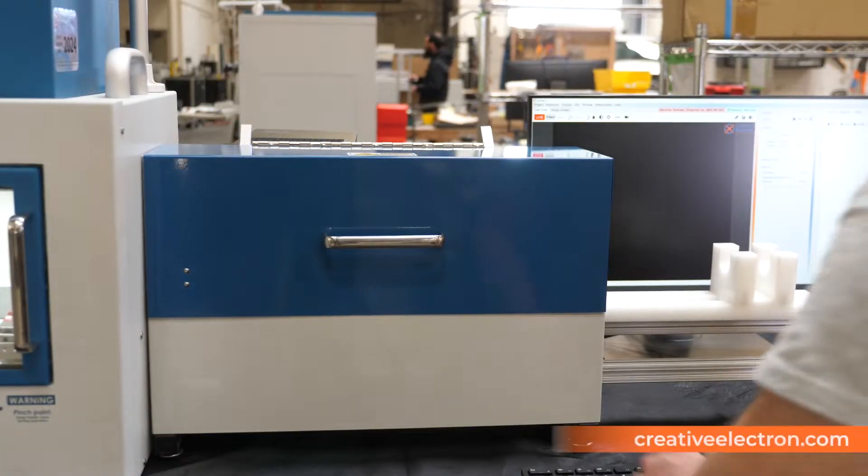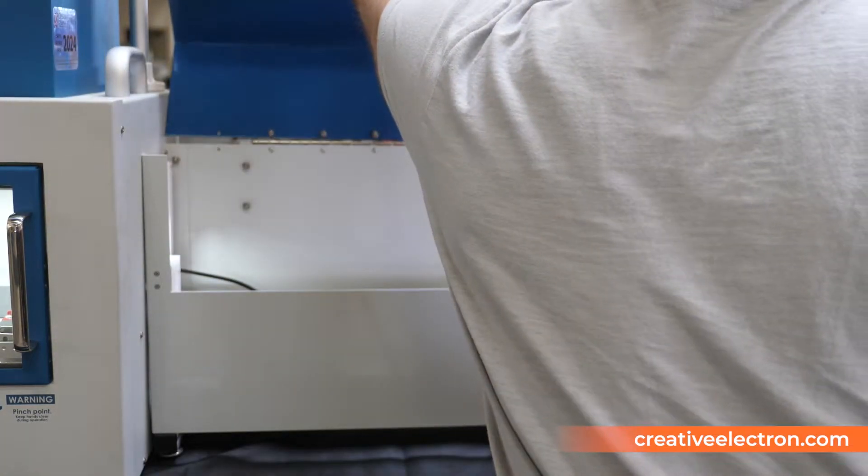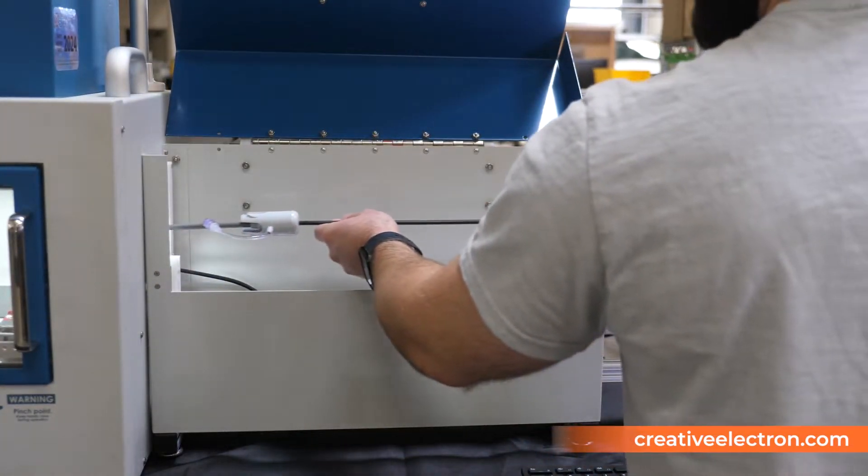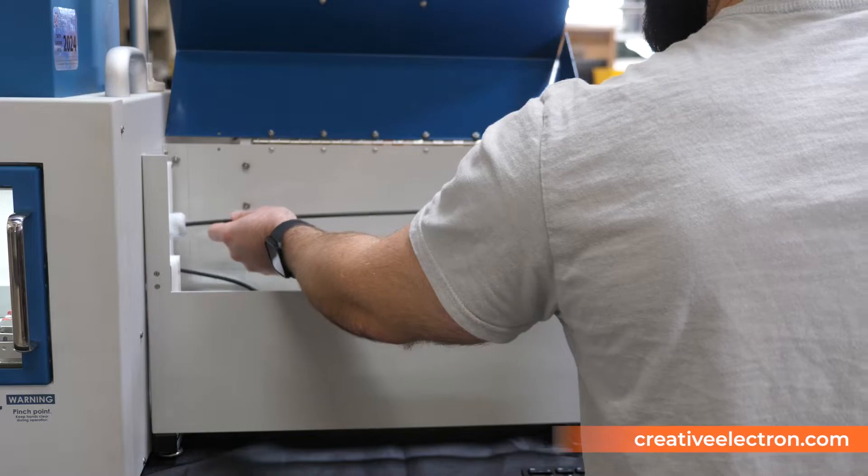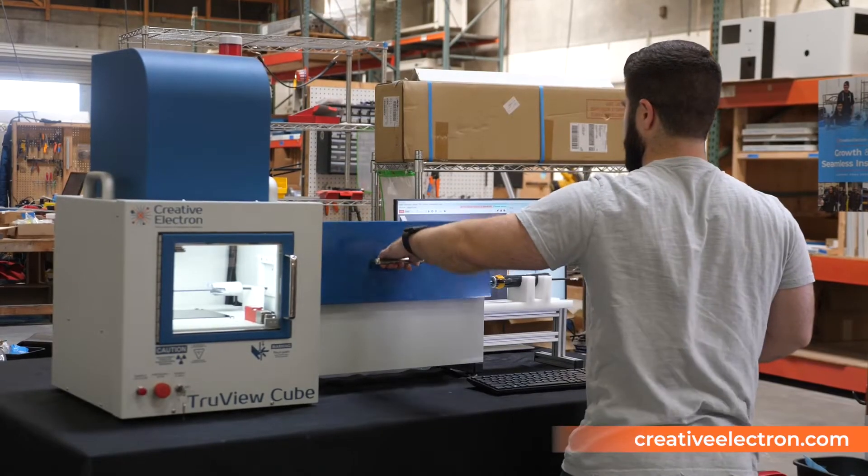This system is designed with the sliding side carriage mechanism to support the handle of your catheter while the catheter tip is inserted into the x-ray cabinet for inspection.